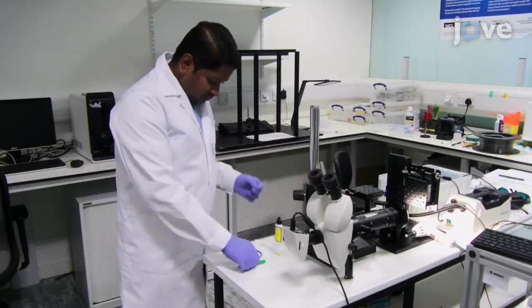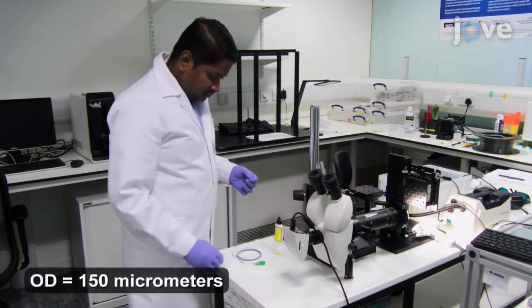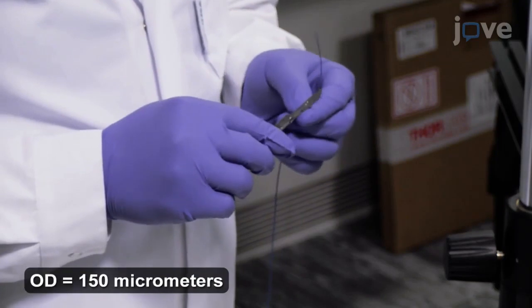Begin by selecting a fiber optic ultrasound hydrophone made up of a single mode optical fiber with a Fabry-Perot optical cavity at the distal end.